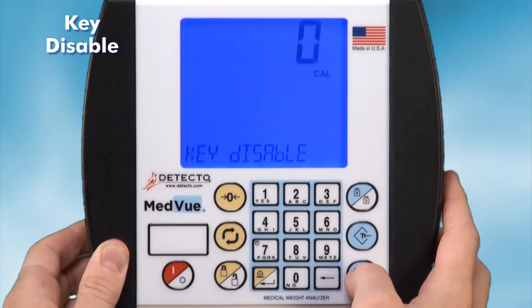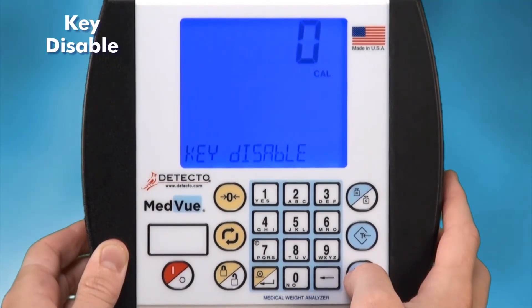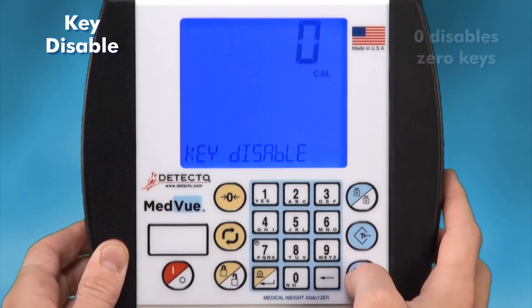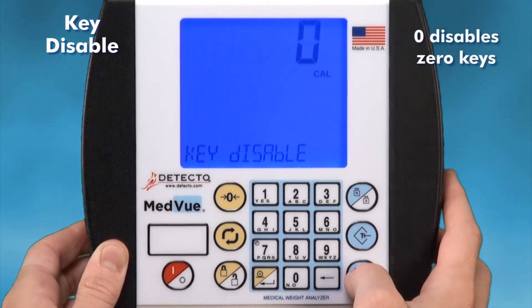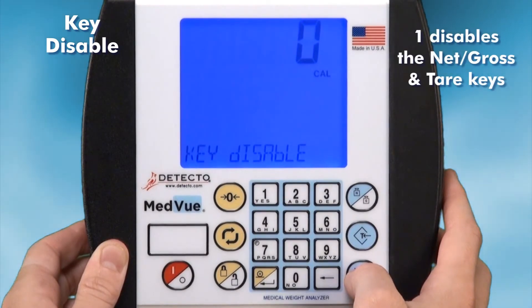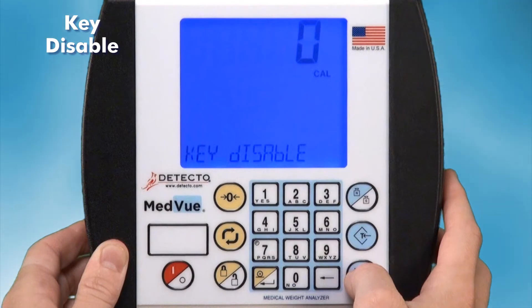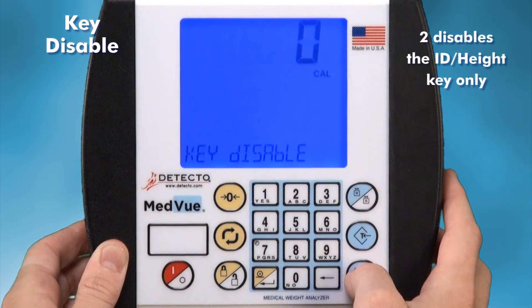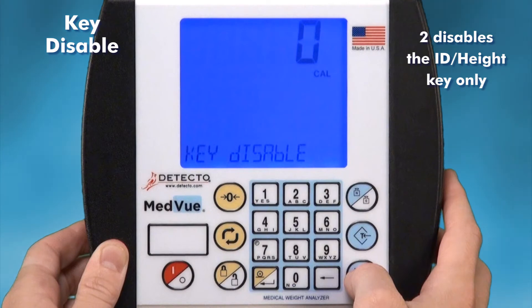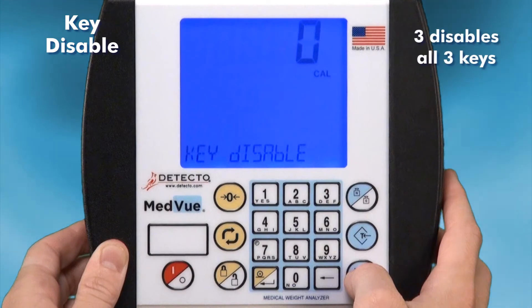Key disable may be used to turn off certain keys of the indicator for simplified operation. Zero disables zero keys. One disables the net gross and tare keys. Two disables the ID Height key only. Three disables all three keys.